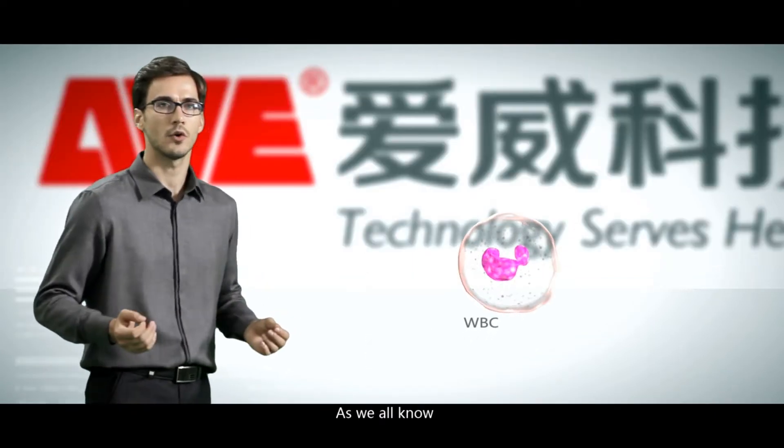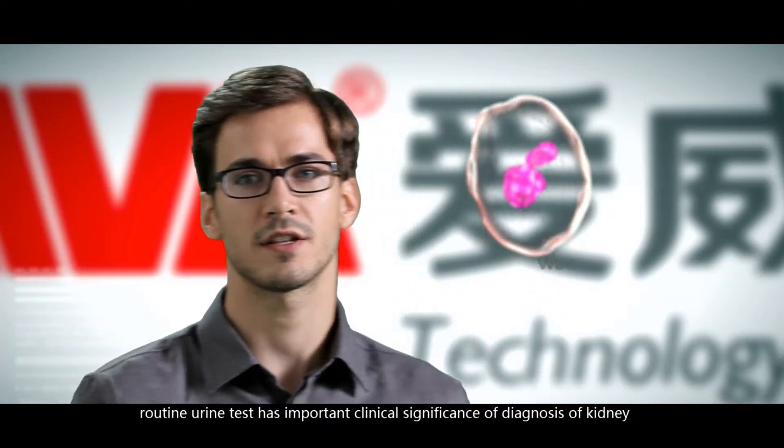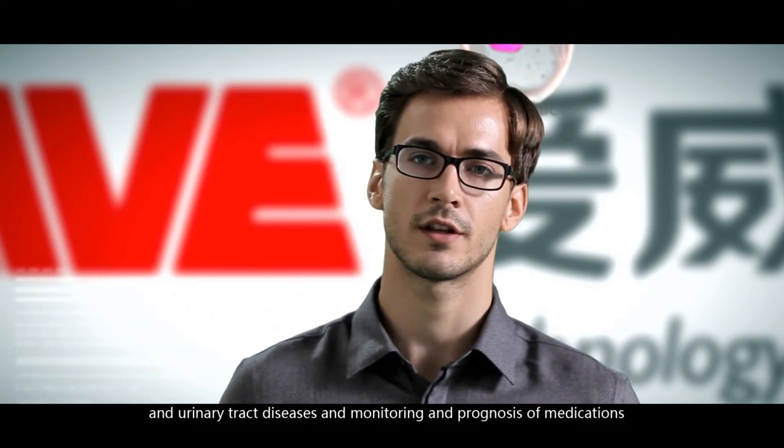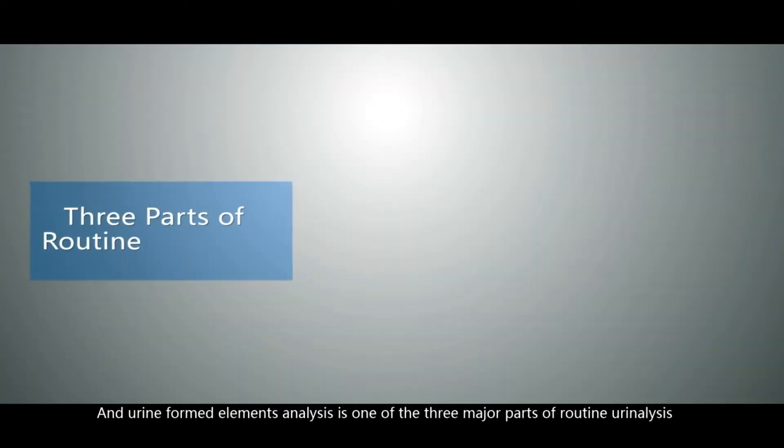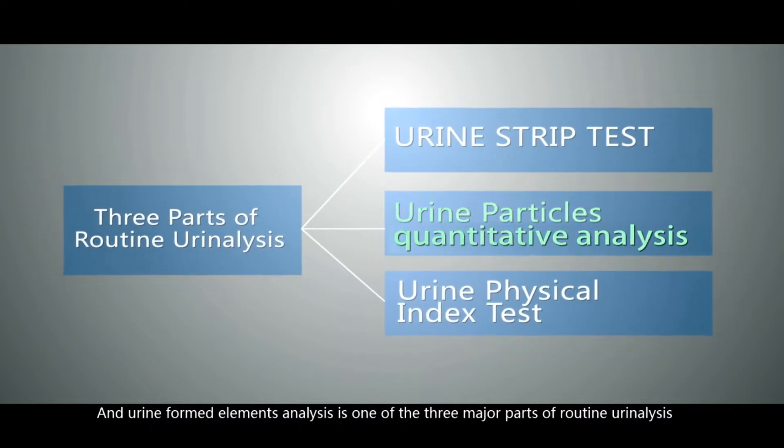As we all know, routine urine test has important clinical significance on diagnosis of kidney and urinary tract diseases and monitoring and prognosis of medications. Urine formed elements analysis is one of the three major parts of routine urinalysis.